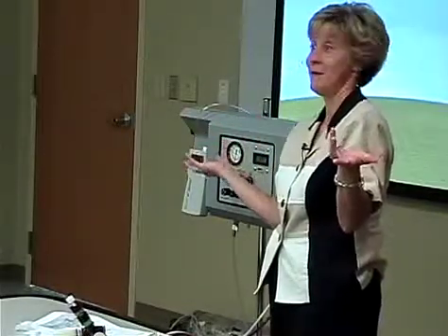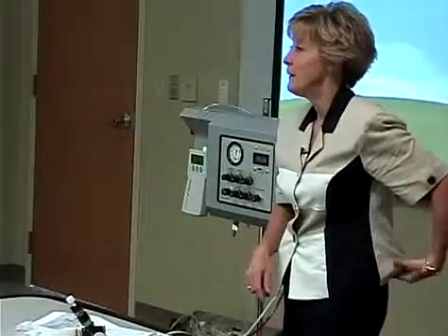We were a bunch of nurses. We didn't know about high frequency, so we didn't know what the amplitude number meant. We didn't know if 20 was high, 40 was high. So we had no problem turning up the amplitude to make that baby better. So that's the thing. You don't have an amplitude readout, and that's what we chart. Does that answer your question?